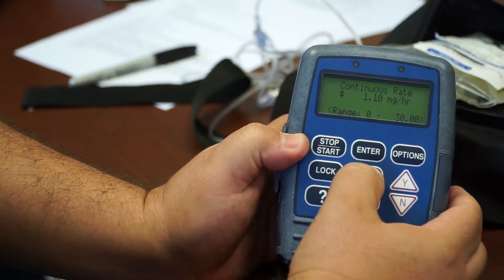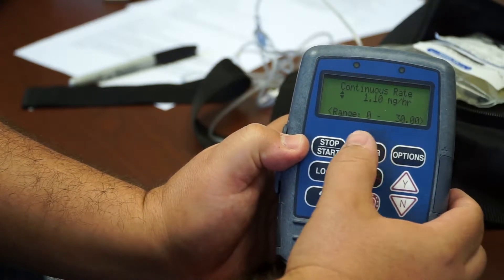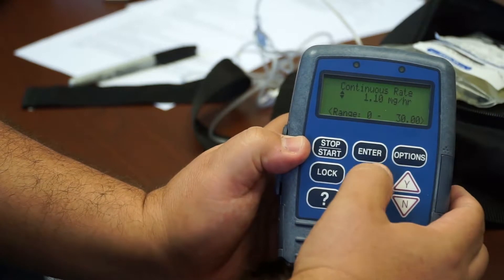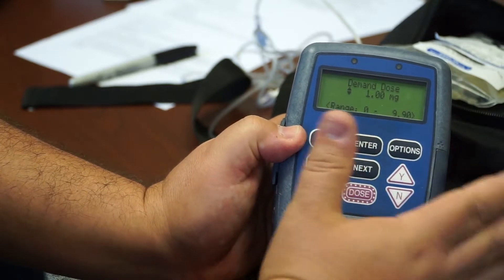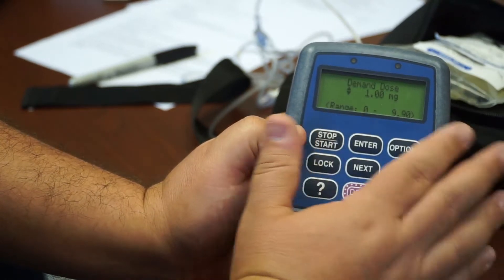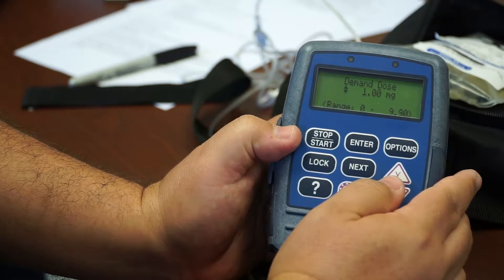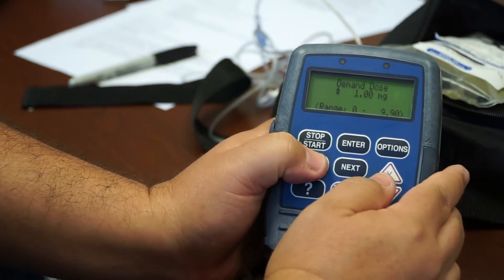I can change the continuation, the continuous rate. I can change all of the settings. So, before I would give this back to a patient with all the correct settings, I would change that lock level again back to one.